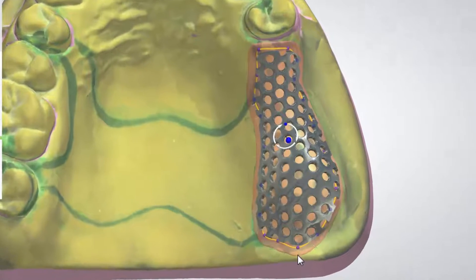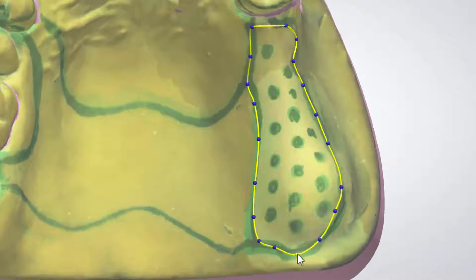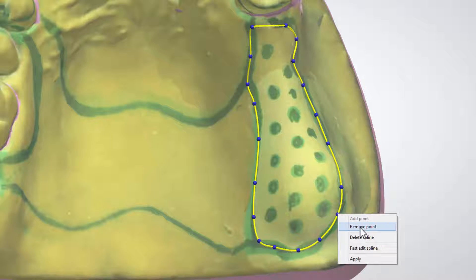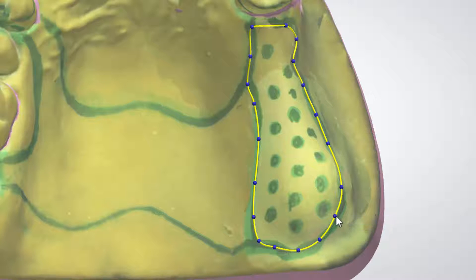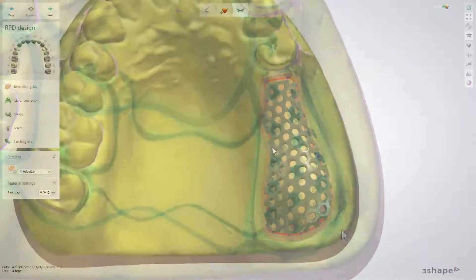You can also change the shape of the outline. To do that, click on any point and drag it to a new direction. The same goes for removing a point or a whole spline — right-click on any point and from the drop-down menu choose either Remove Point or Delete Spline.